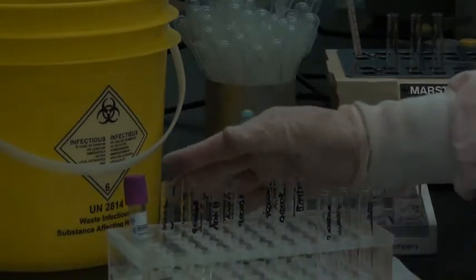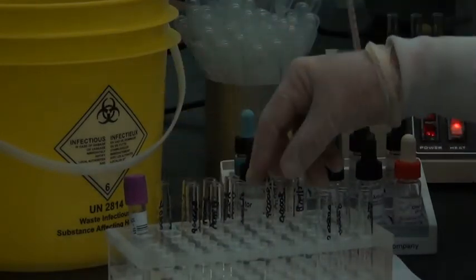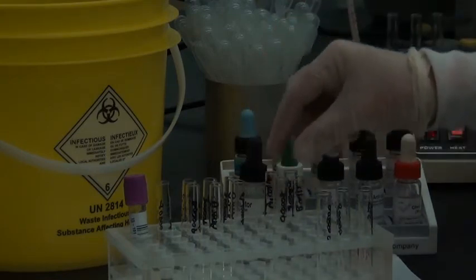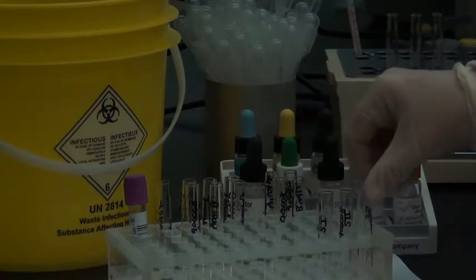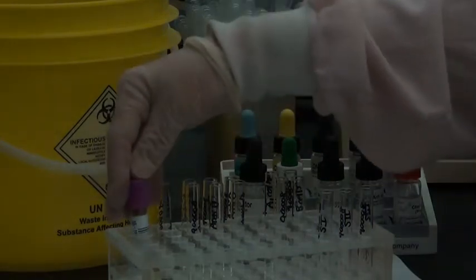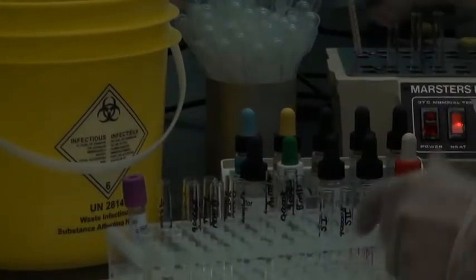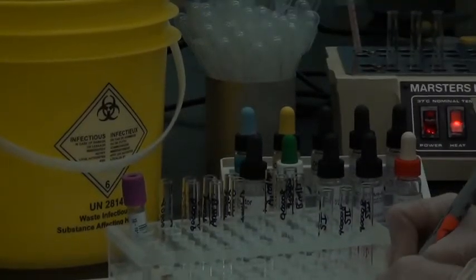So we have anti-A, anti-B, and anti-D tubes set up in duplicate, A1 and B cells for the reverse group set up in duplicate, and we have our screening cell 1, 2, and 3. And the labeling on these is the accession number that corresponds to the EDTA sample. I'm just going to label one more tube for the second 5%. So I've got one tube labeled with all the information required for the first 5%.